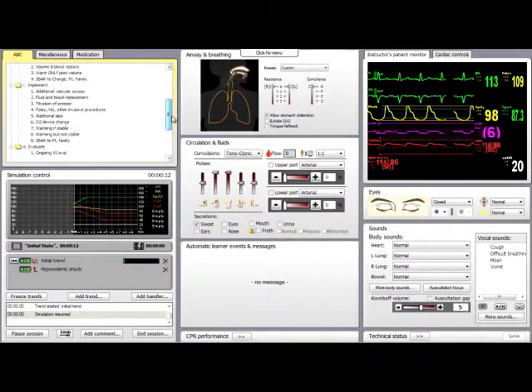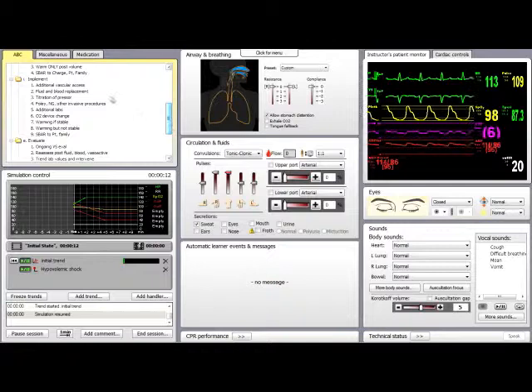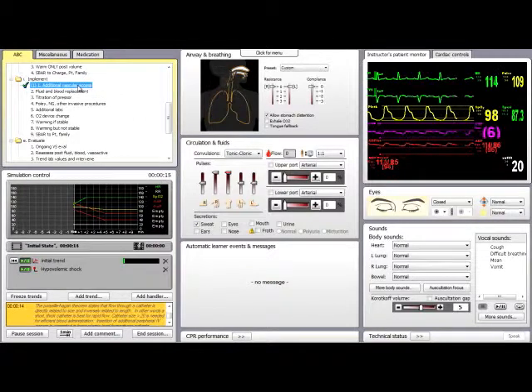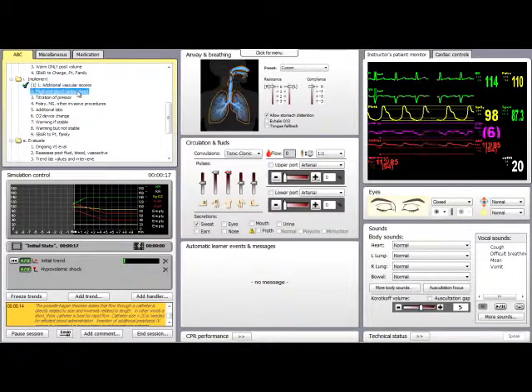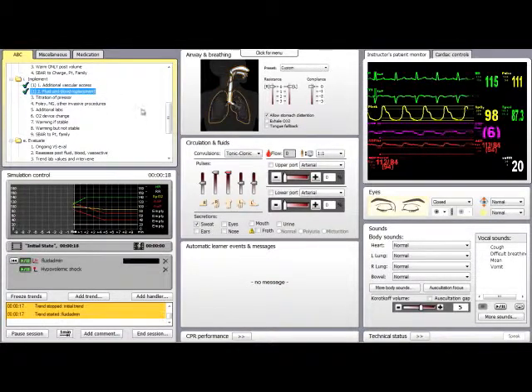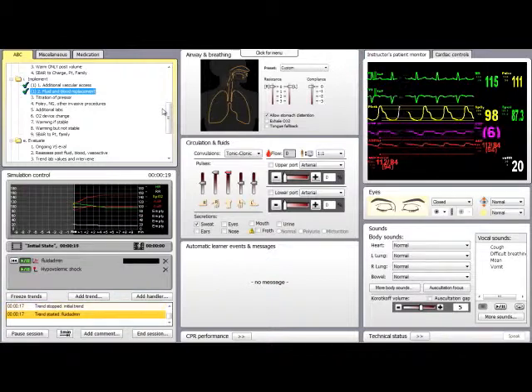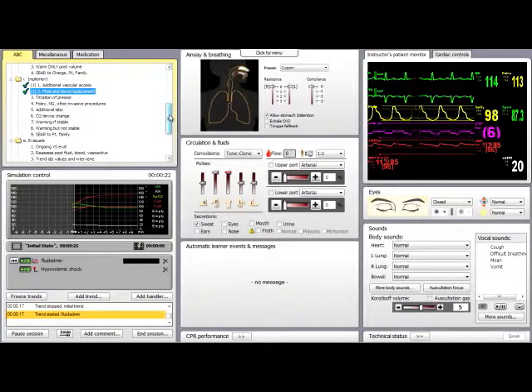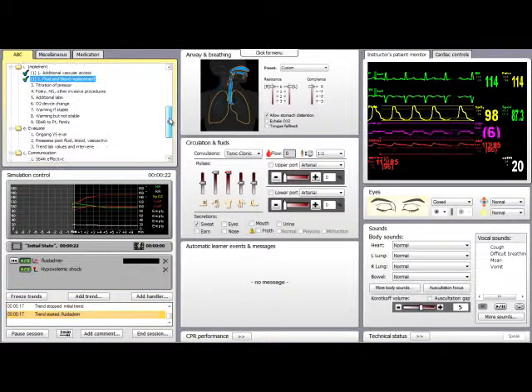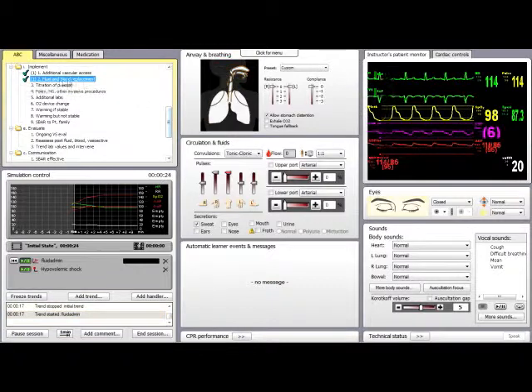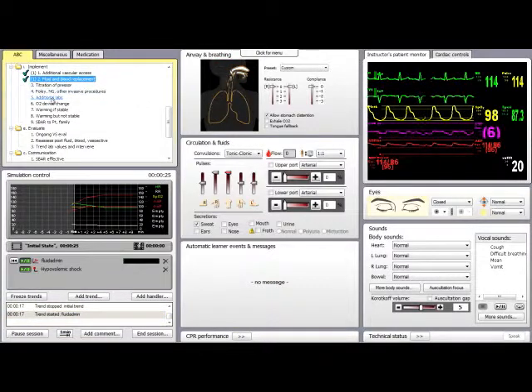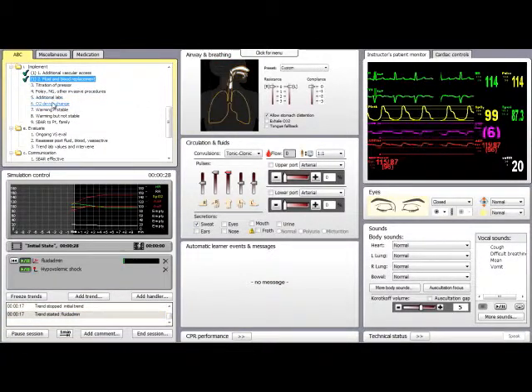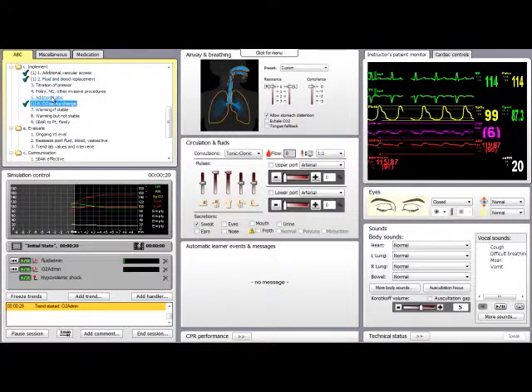You'll notice that our eyes are closed. That was one of our additions, and our patient is currently seizing. That was another addition we made. Looks like our trends are working.